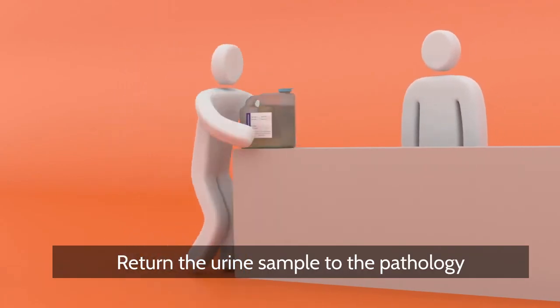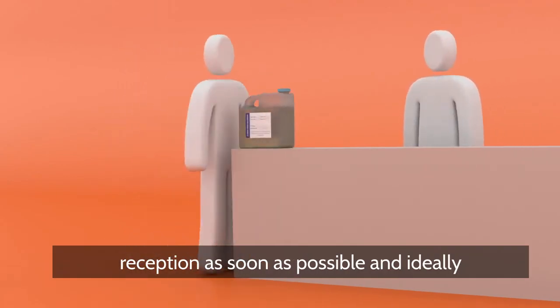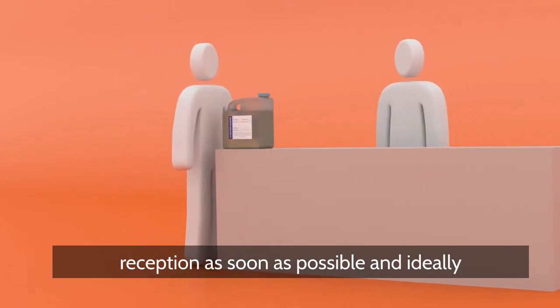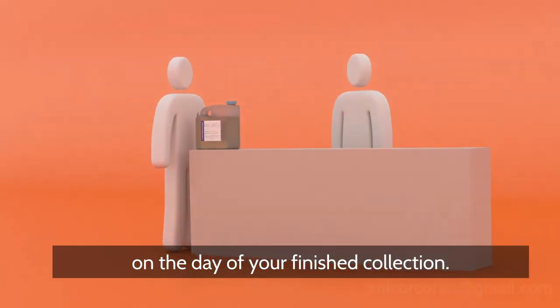Return the urine sample to the pathology reception as soon as possible and ideally on the day of your finished collection.